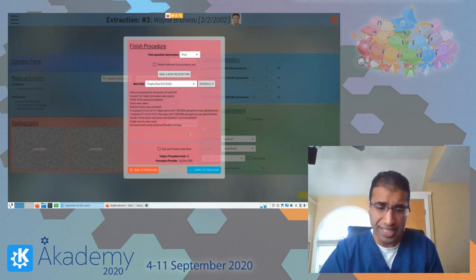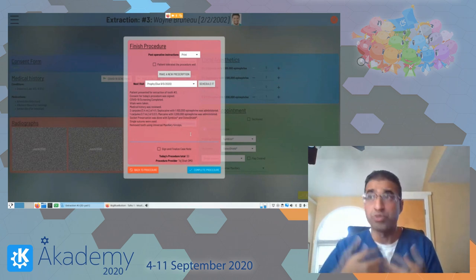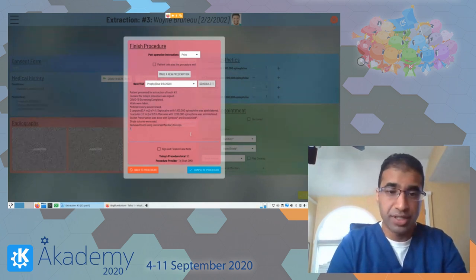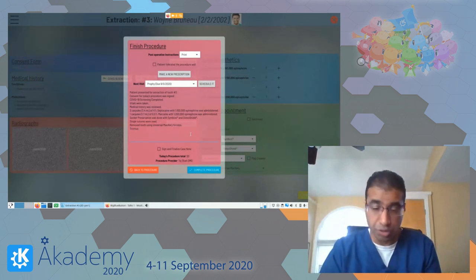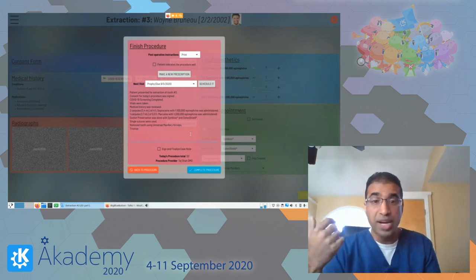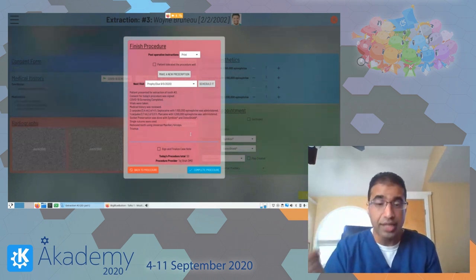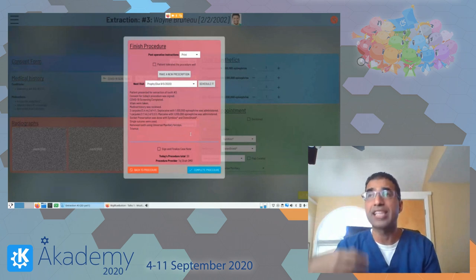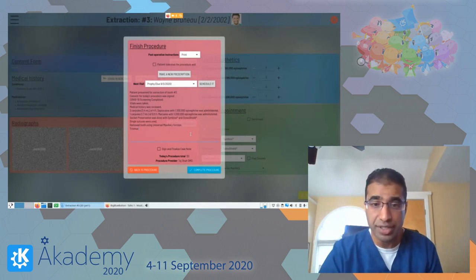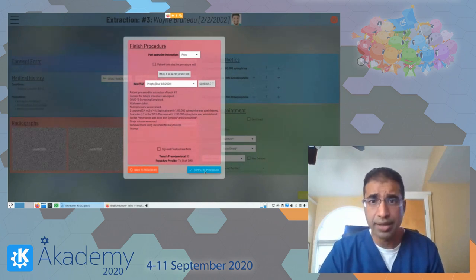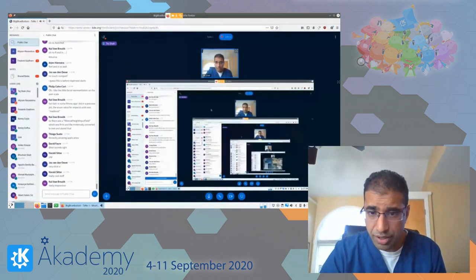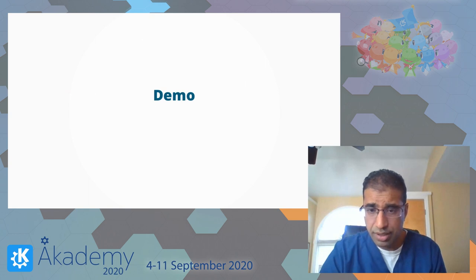Sometimes you want to add a quick note — for example, during the procedure the patient couldn't open their mouth, so you'd note trismus. This uses the KDE virtual keyboard. I'm being lazy right now with keyboard and mouse, but it's 100% touch-friendly. You can write something like 'patient had severe trismus during today's procedure but patient was able to tolerate just fine.'